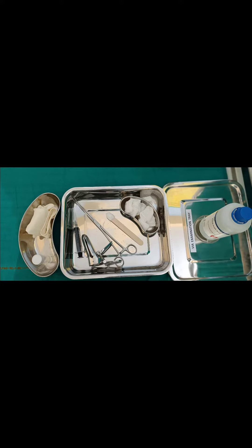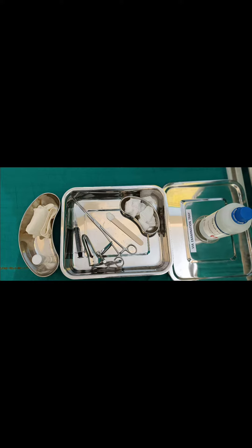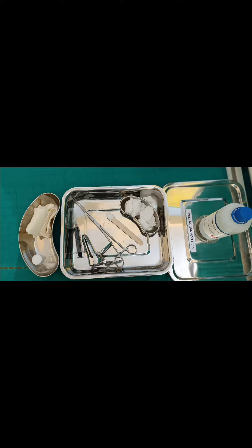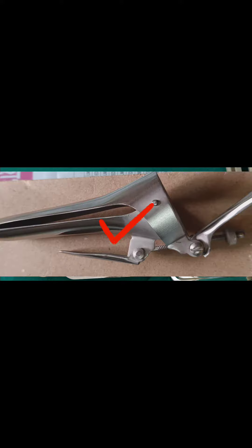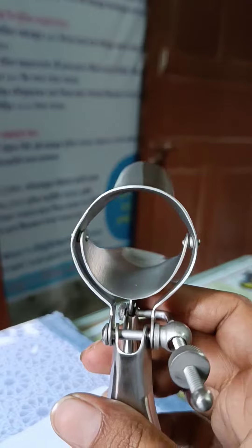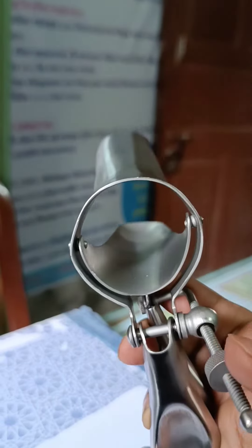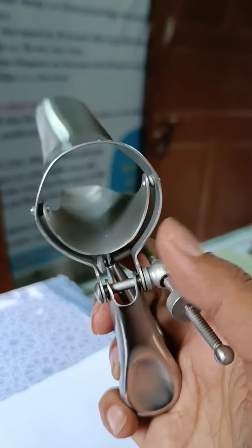Now I am going to explain the VIA examination tray. The tray contains one small kidney dish with gauze pieces, for the purpose of cleaning, and a sponge holding forcep for cleaning the ectocervix and vagina. Another item is the Cusco speculum — this is a bivalved, self-retaining Cusco speculum. This is the screw used to fix it.